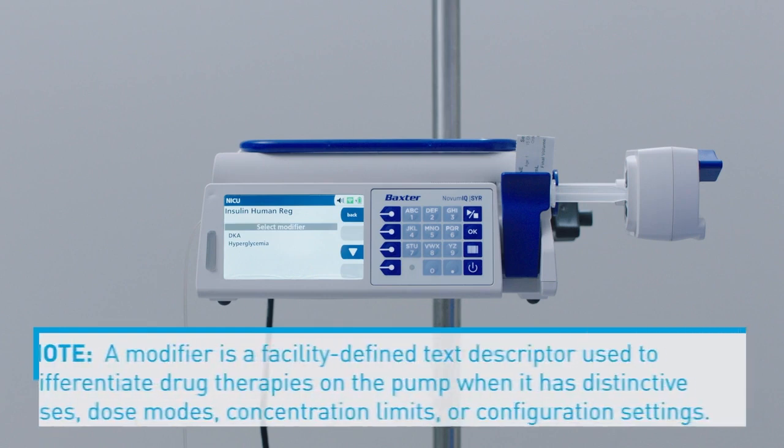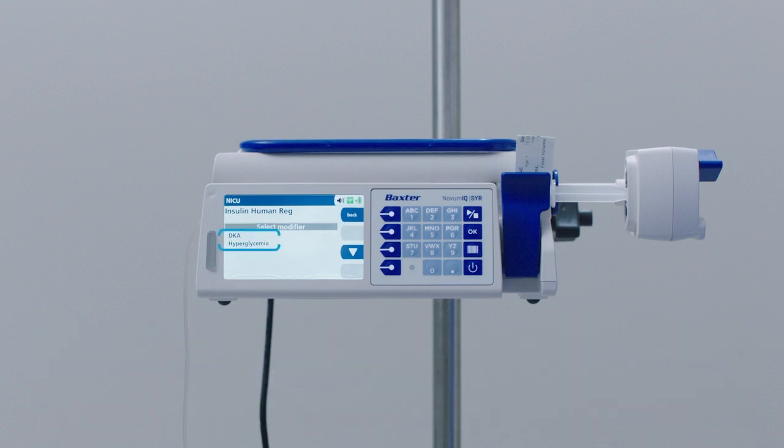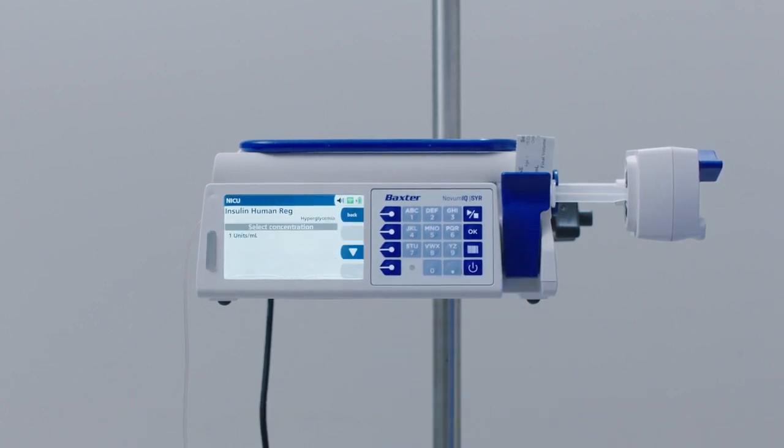Note: a modifier is a facility-defined text descriptor used to differentiate drug therapies on the pump when it has distinctive uses, dose modes, concentration limits, or configuration settings. At this screen, a list of modifiers that are available for the selected drug is displayed. Use the arrow soft keys to select hyperglycemia. Press OK. The concentration selection screen appears.